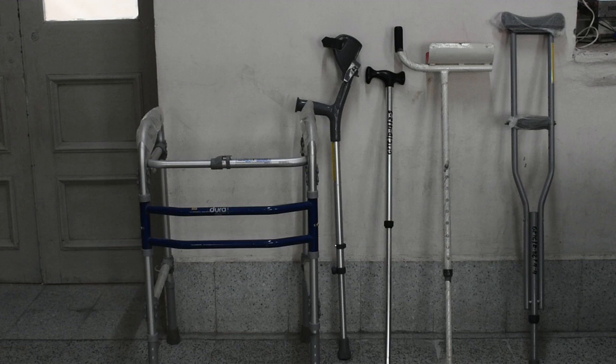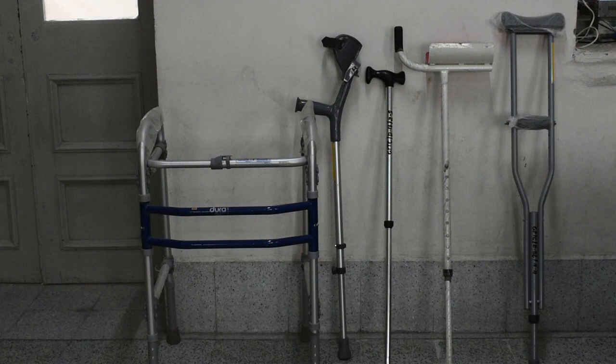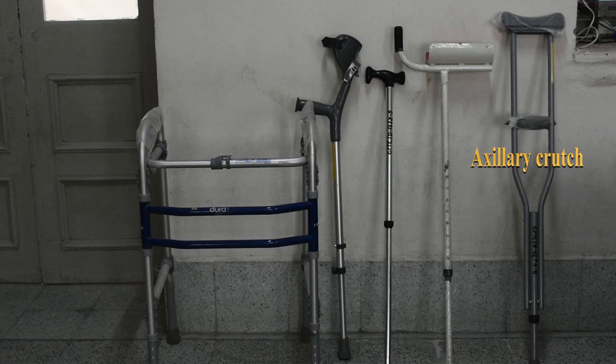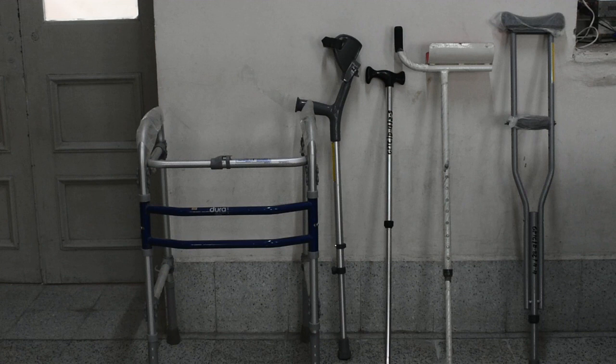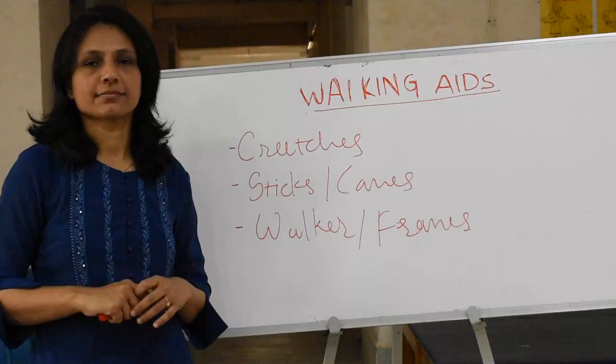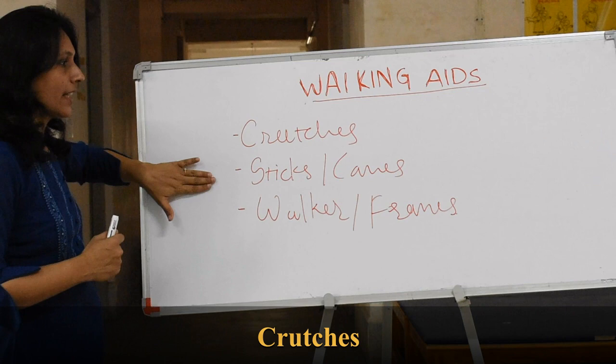The first one is a walker. Beside that is a forearm crutch. Then you have a stick in the center. Then you have a gutter crutch, and at the last is the axillary crutch. So basically we have three things: crutches, stick, and frame or the walker. We will learn each and every one individually in detail. We have three types — first is crutches, second is sticks or canes, and third one is walkers or frames.